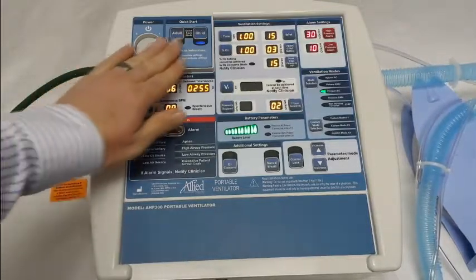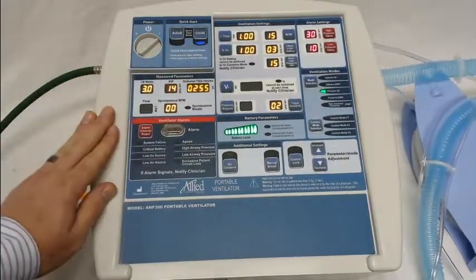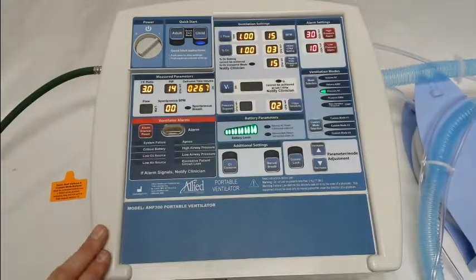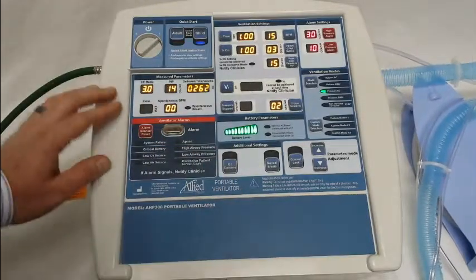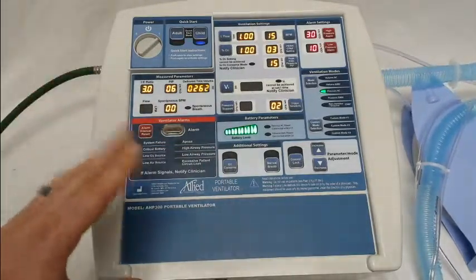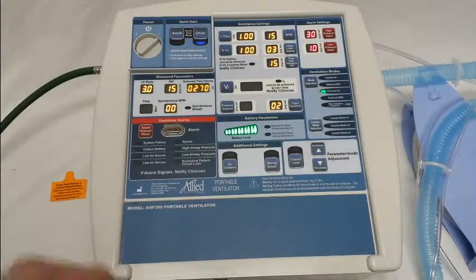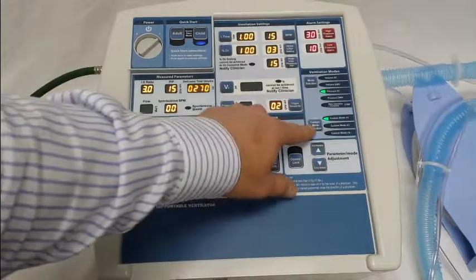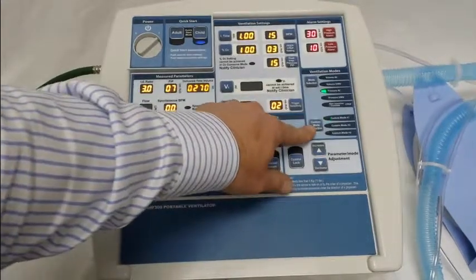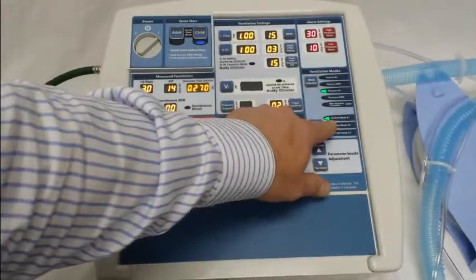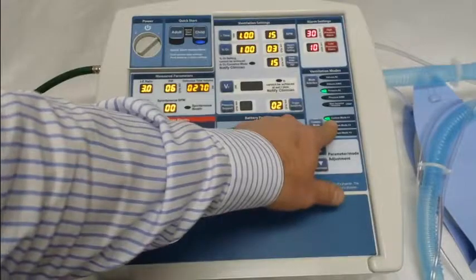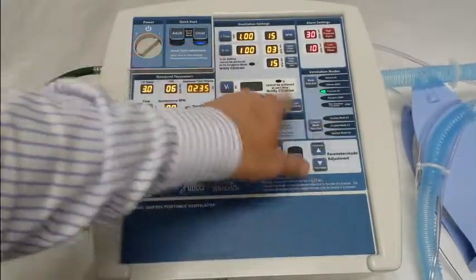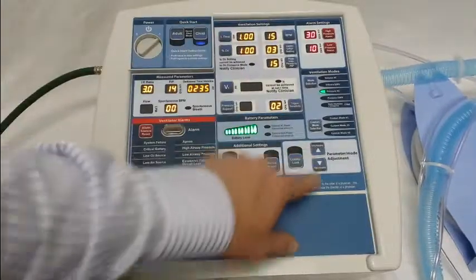That's setting the adult and child quick start. Now I'll move on to the custom modes. To set the custom modes, it's largely the same process, but you're going to use different buttons. They're locked out from the factory, so if I try to select it, it won't let me — you'll notice it's flashing and it's still ventilating in child mode. After a period of time, it just cancels out.